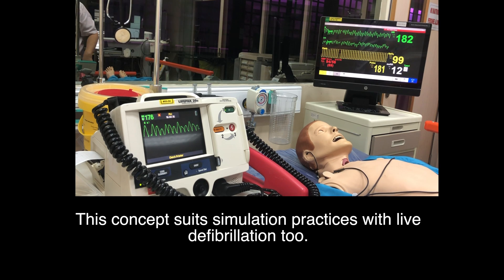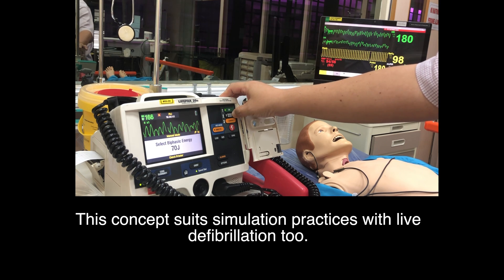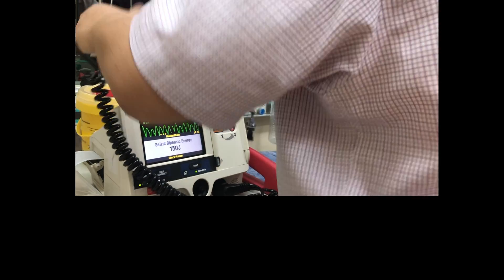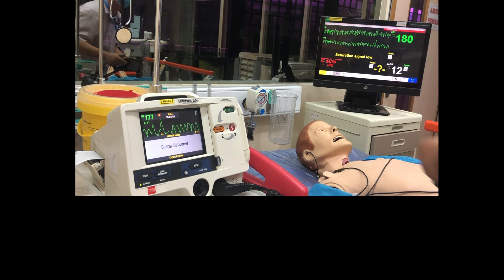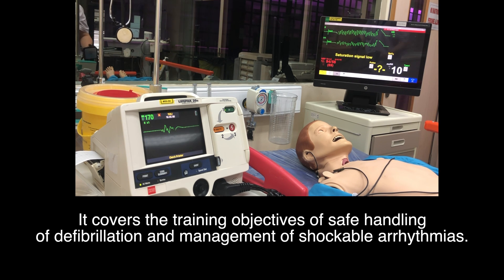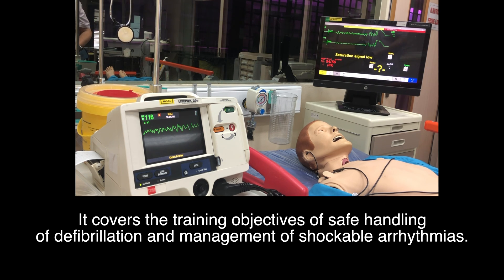Demonstration with Medikin and a live defibrillator. This concept suits simulation practice with a live defibrillator too. It covers the training objectives of safe handling of defibrillations and management of shockable arrhythmias.